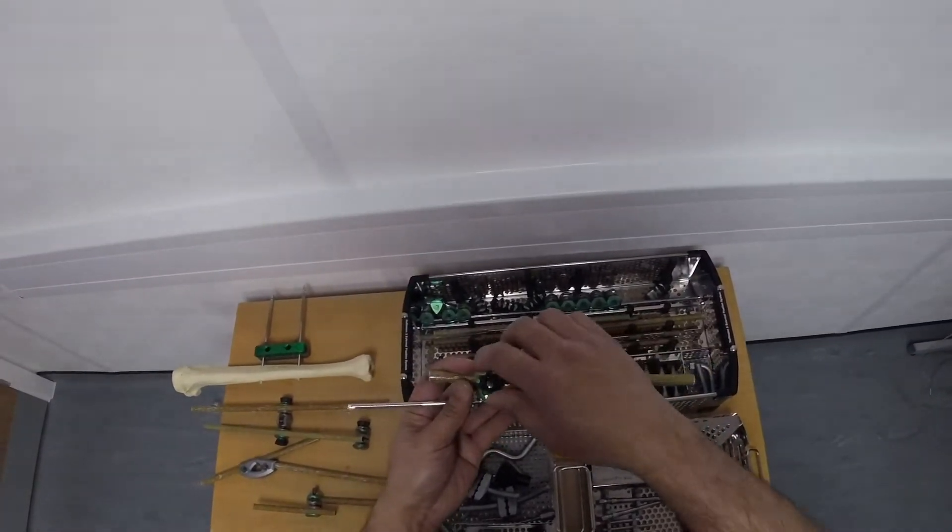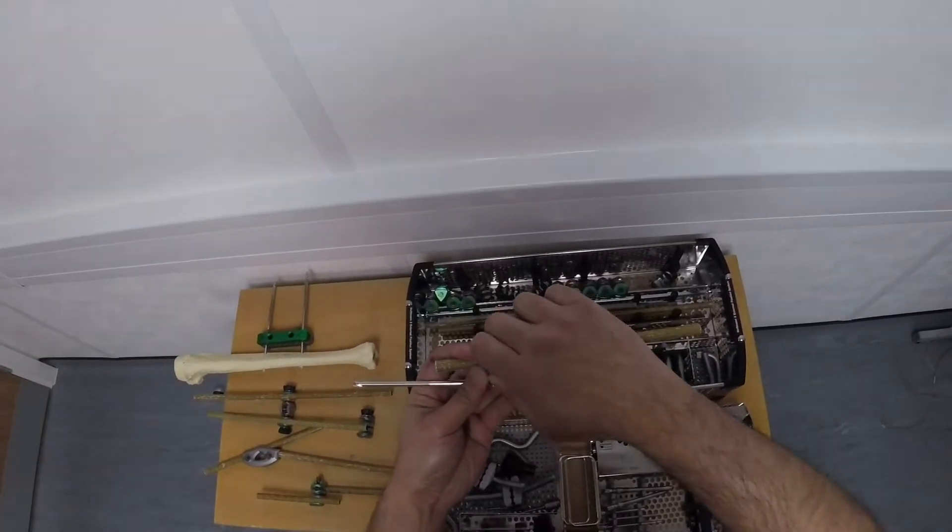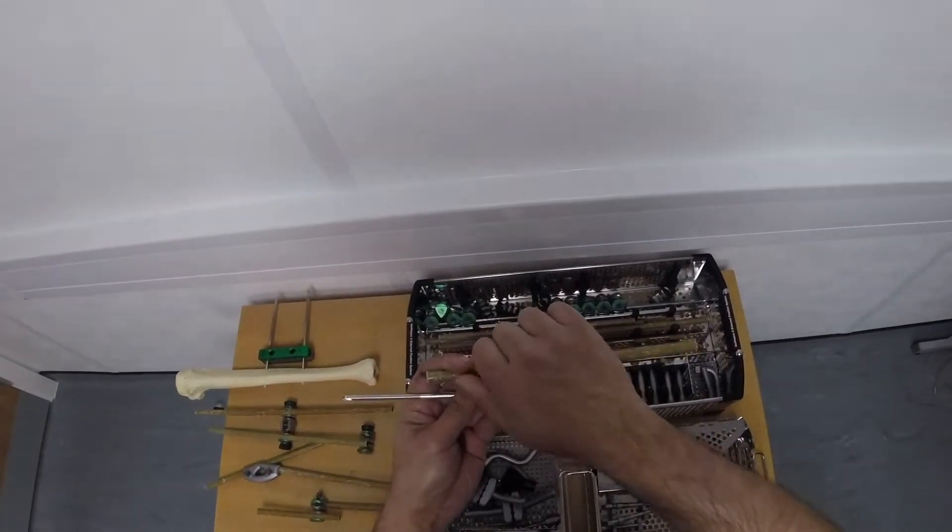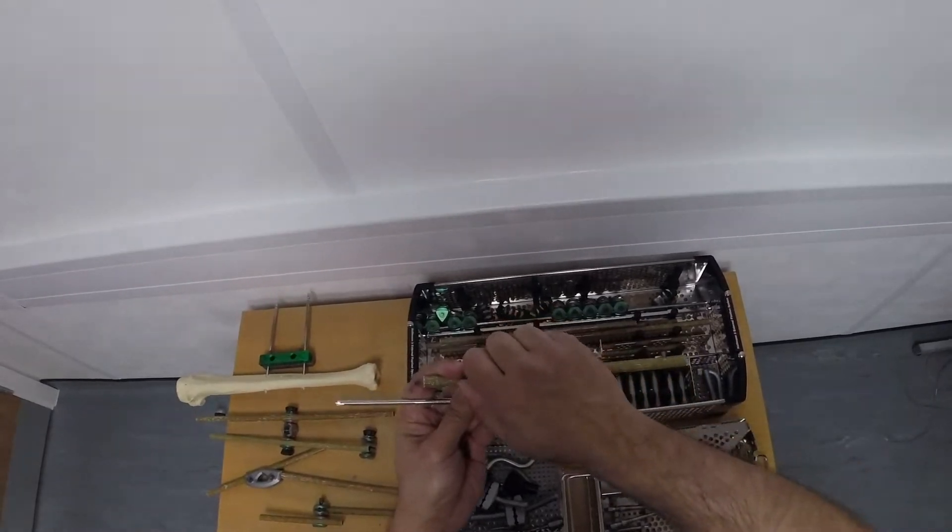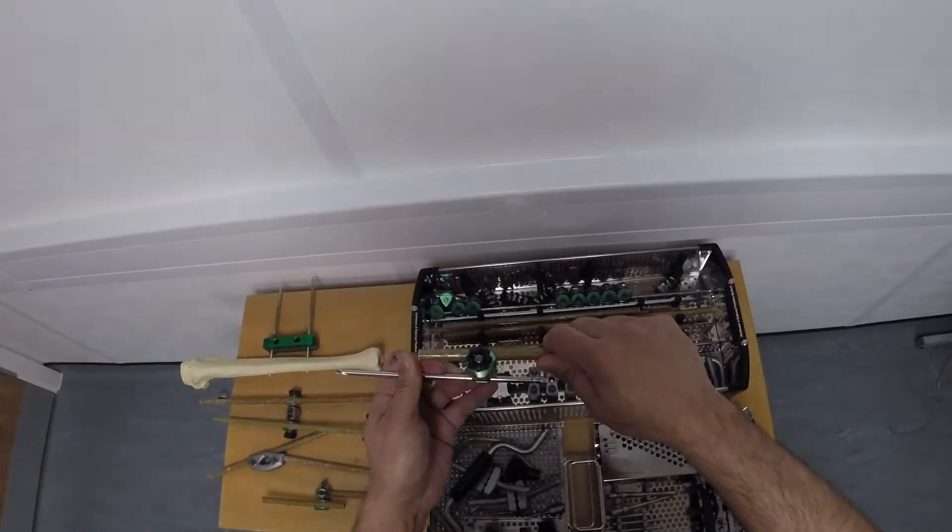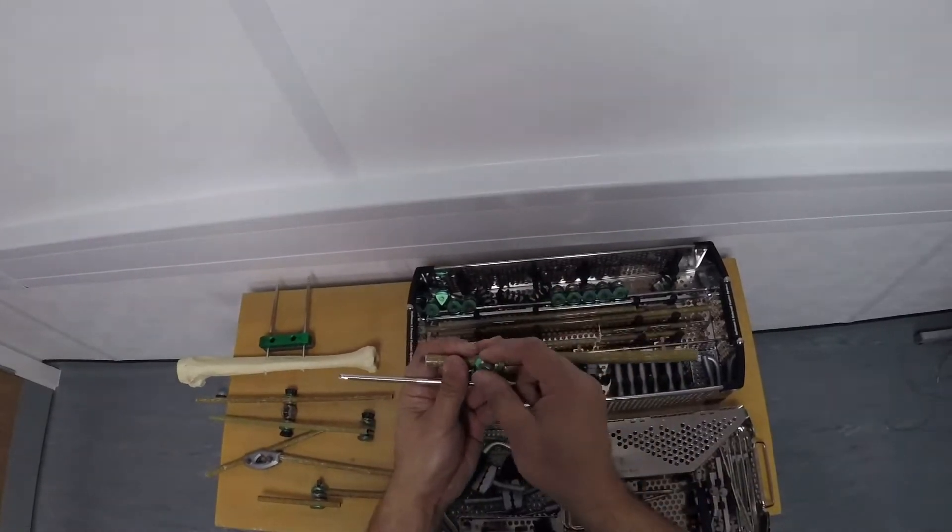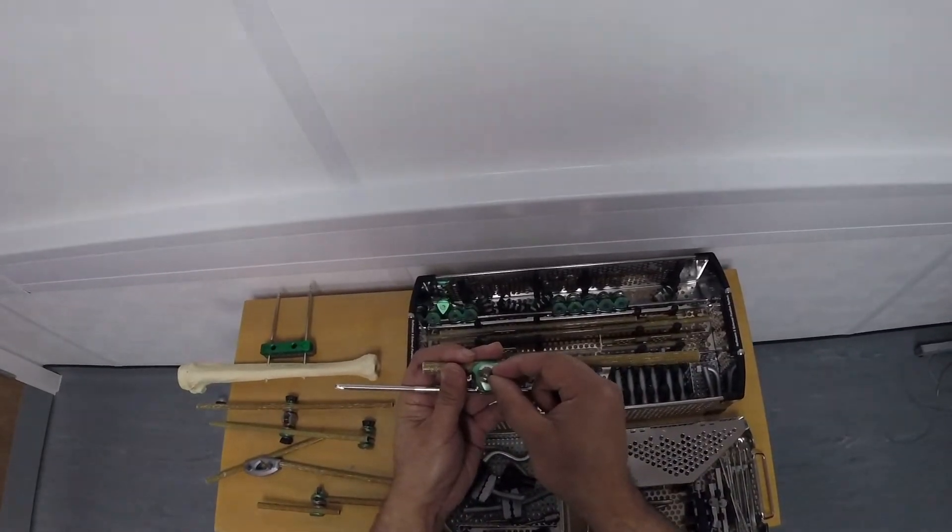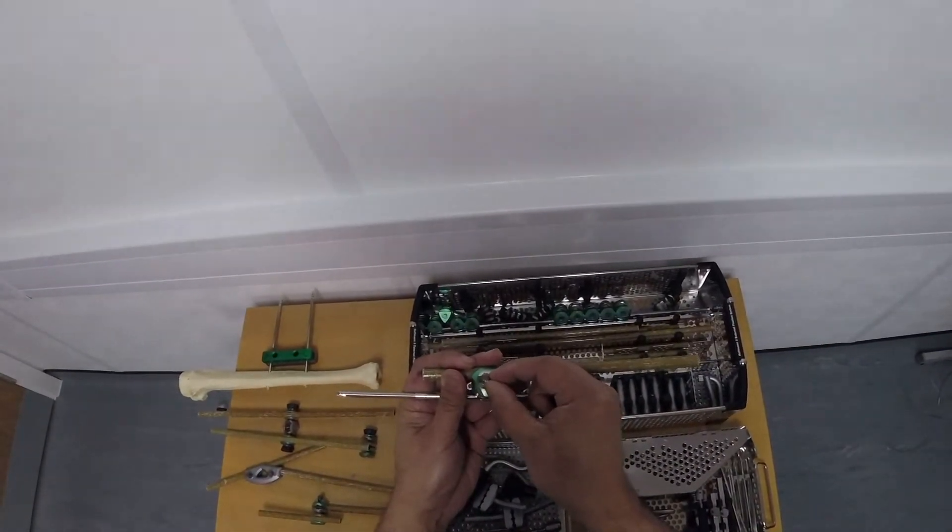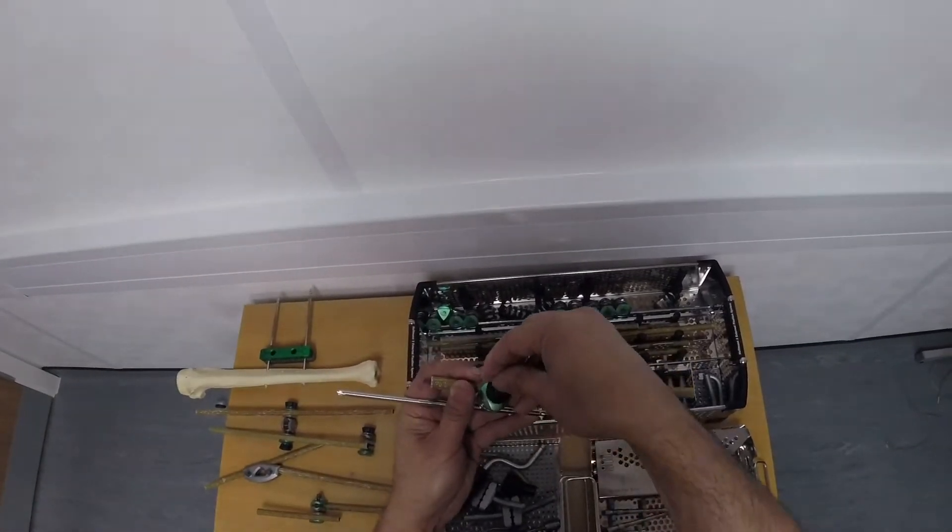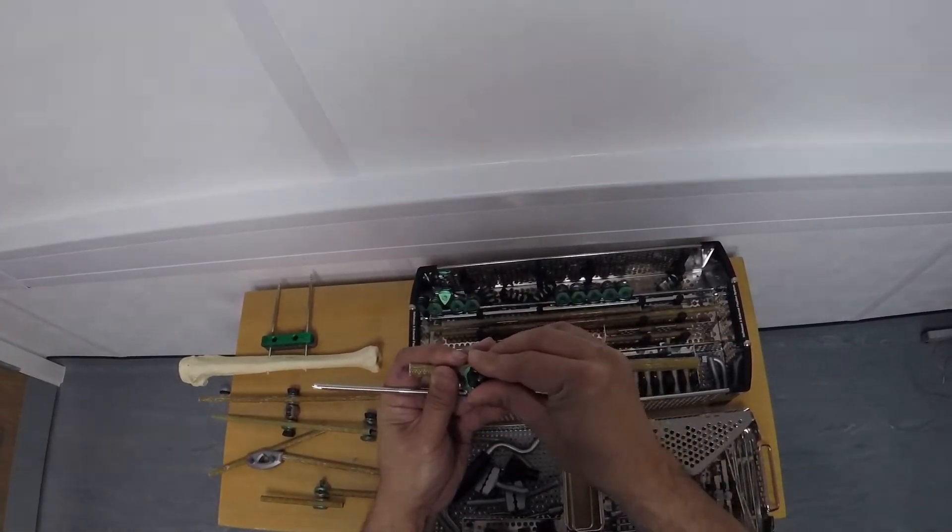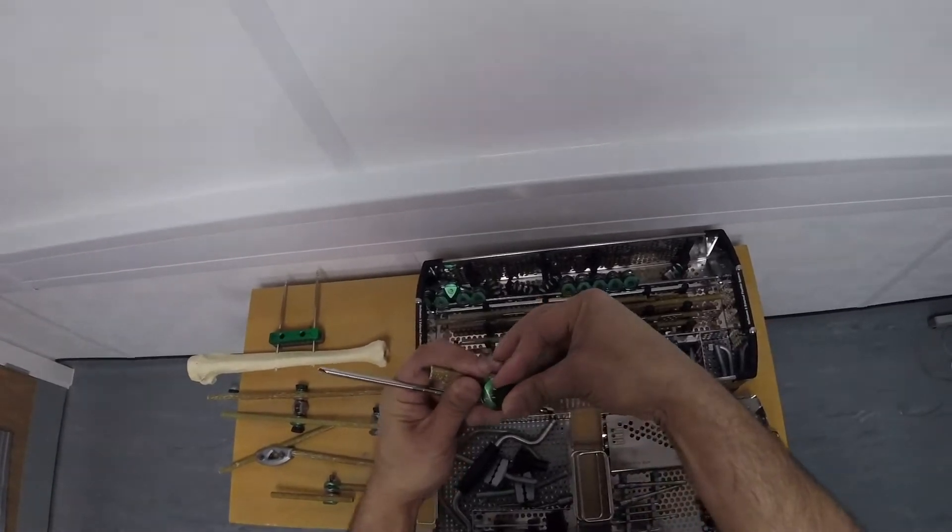In order to tighten it up, I can use this thumb screw. Just finger tight will actually give me a good grip and that will not now move. I can take that off and I can use a 7mm wrench or spanner in order to tighten that up even further so that it can't possibly move. Let's put the thumb screw back on.